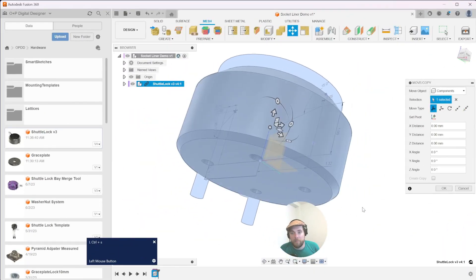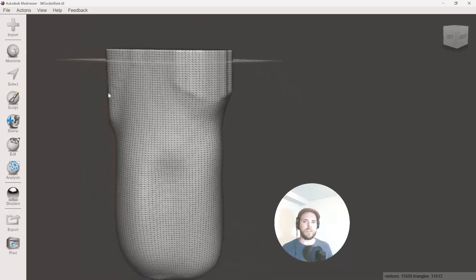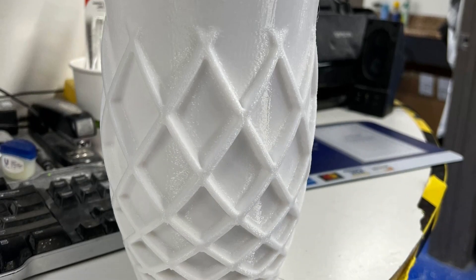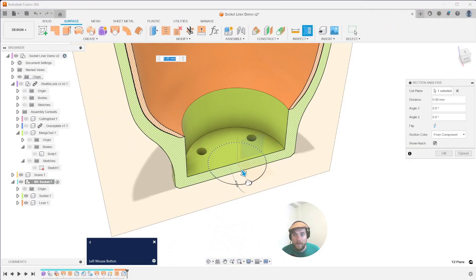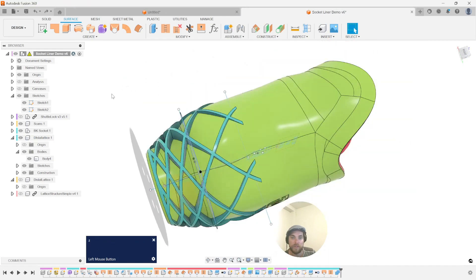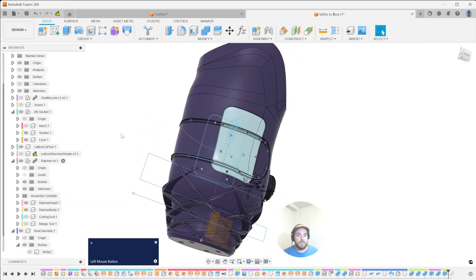This course will go over the basic user interface of Fusion 360, cover several methods of modifying and correcting scans for CAD, and then dive deep into design analyses for current MJF or FDM designs. We learn how to make adjustable liners, variable shell thicknesses, mounting hardware approaches, logo and identifier embossing, lattice generations, boa cabling, and butterfly paneling — all in the same course.